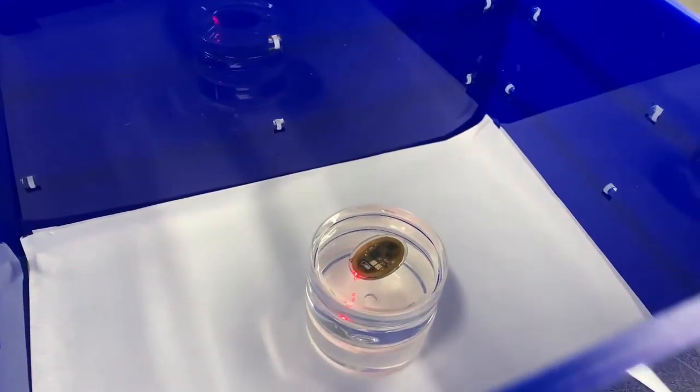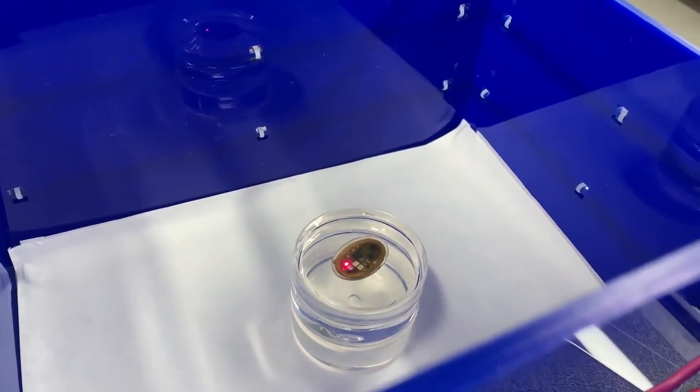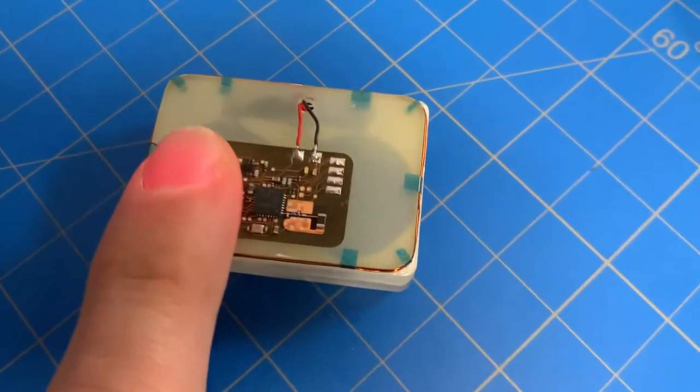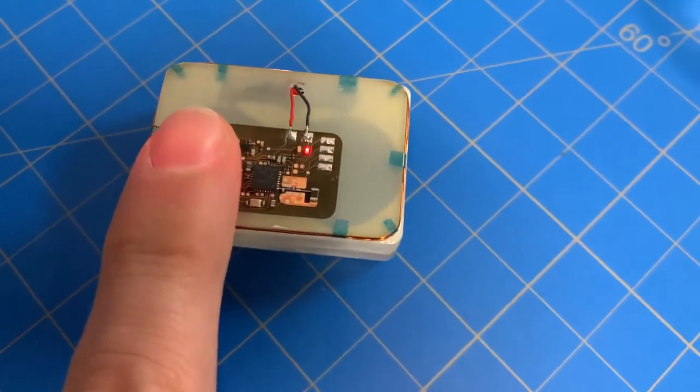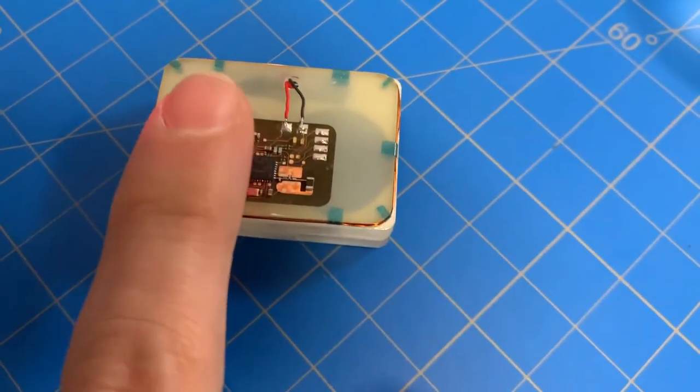We also test the devices. This is a clip of the wireless oximeter working, and another clip of a different version where I'm testing with my finger. You can see the red light coming through my fingernail, which is part of the test working.